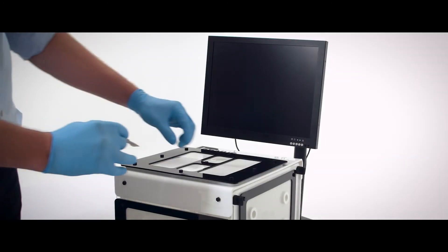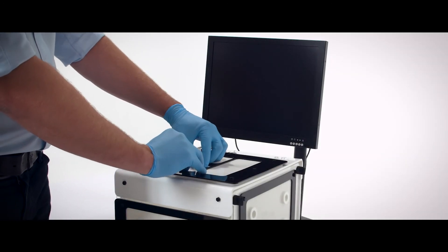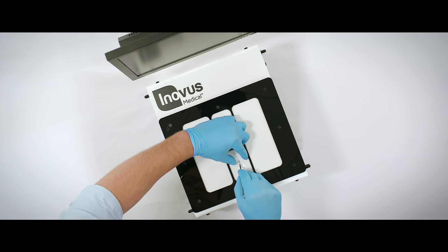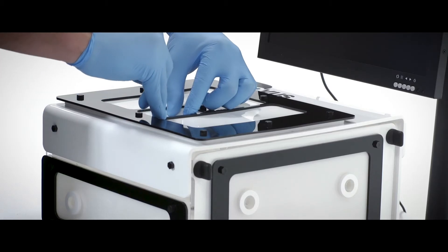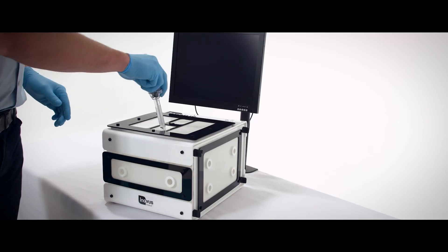The Port Entry Trainer is ideal for practicing entry of the scope port, allowing the training surgeon to dissect through the abdominal wall down to the peritoneum, followed by entry of the port itself.